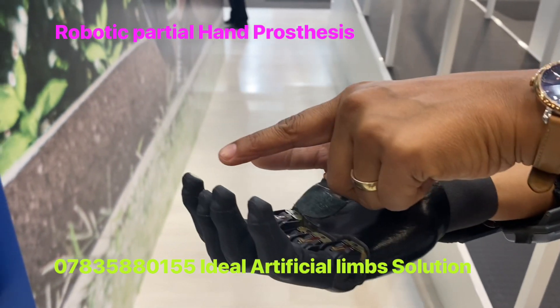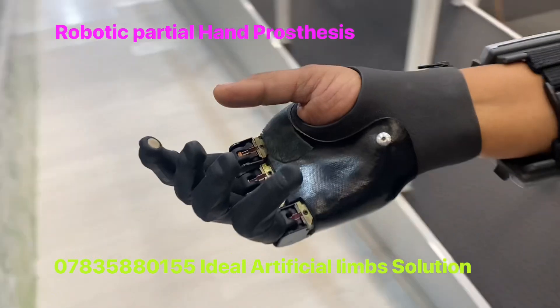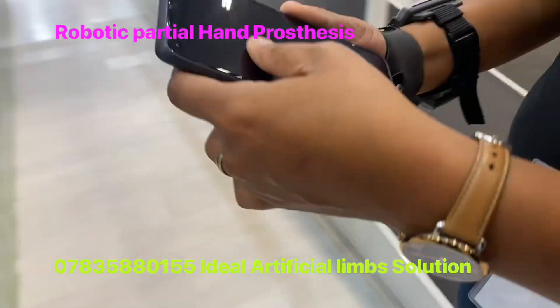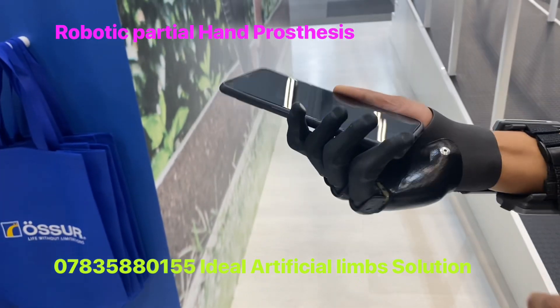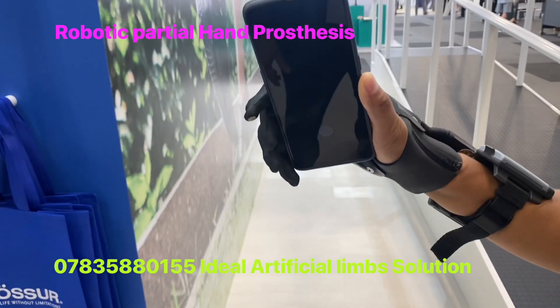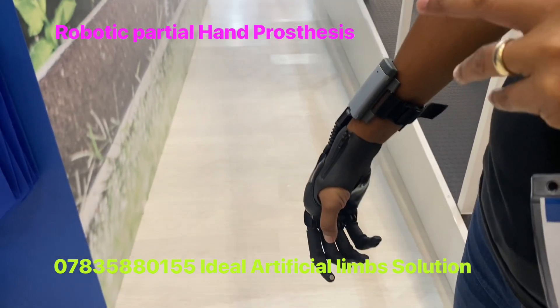There is a gesture — you have a wrist twitch here. I can change the shape to different shapes. This is called vary grip. This is as natural as it could be, and it is not going to break the object you are holding. I keep the hand in the open position.